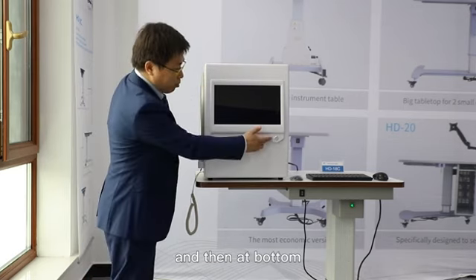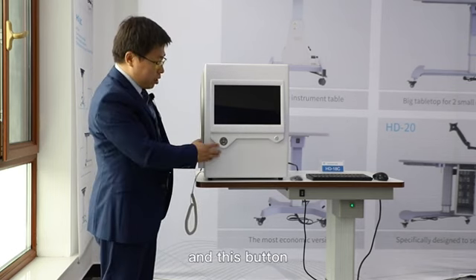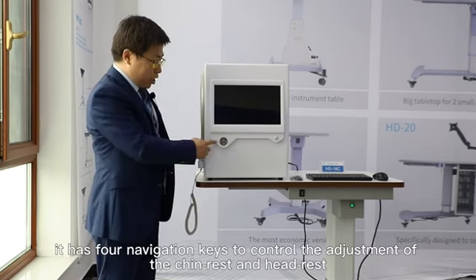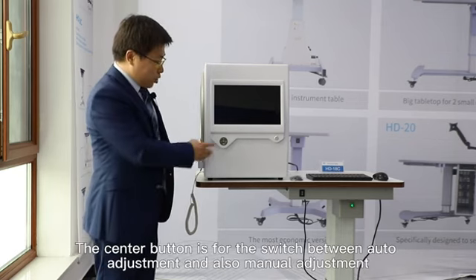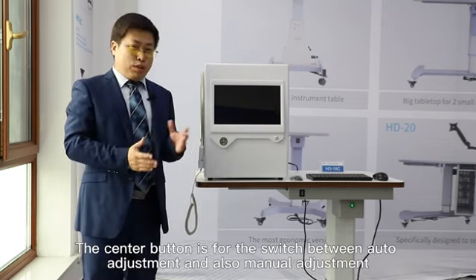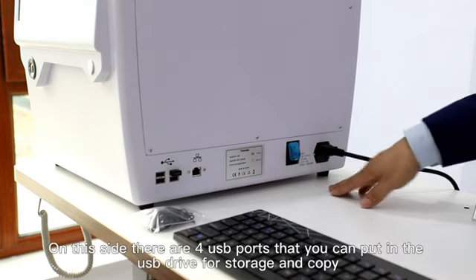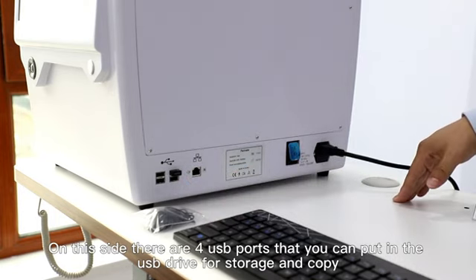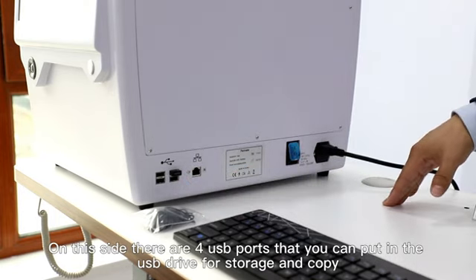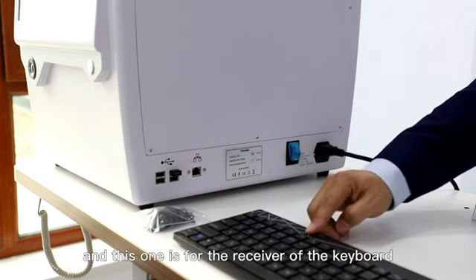Then at the bottom, there are 2 buttons. This button is for the power, and this button has 4 navigation keys to control the adjustment of the chin rest and headrest. The center button is for switching between auto adjustment and manual adjustment. On this side, there are 4 USB ports that you can put a USB drive in for storage, copying, and also data transfer. And this one is for the receiver of the keyboard.